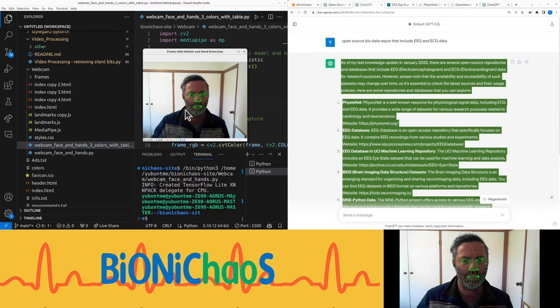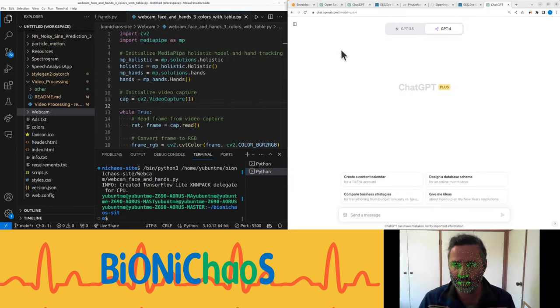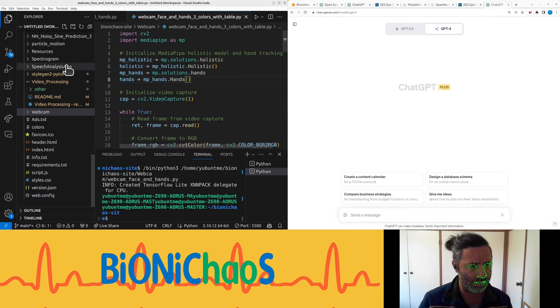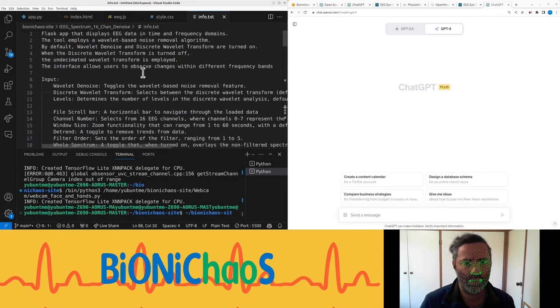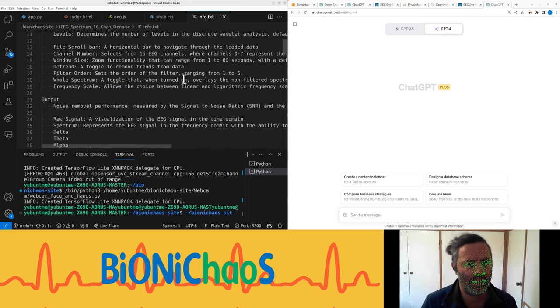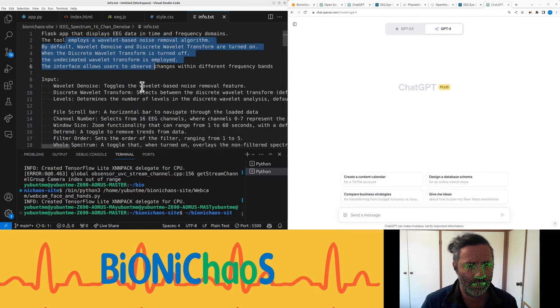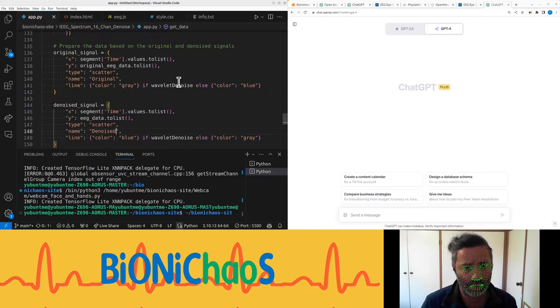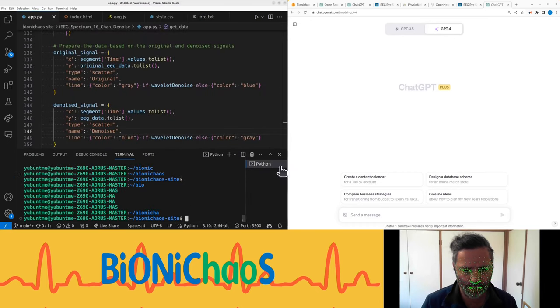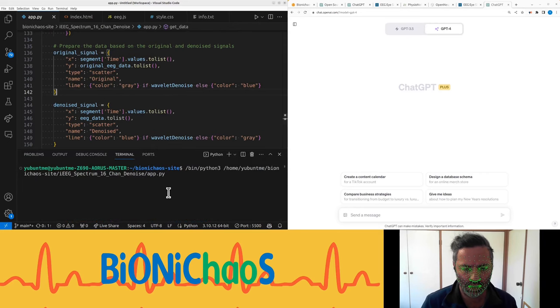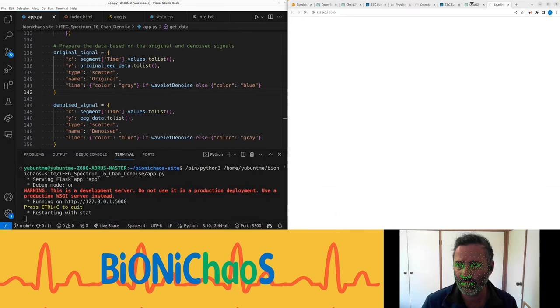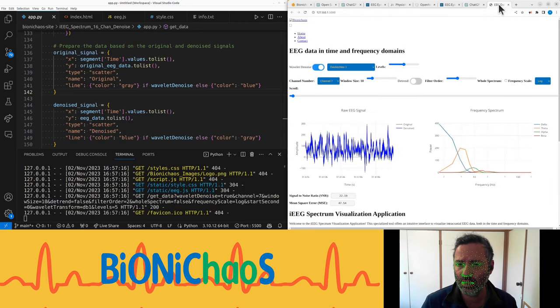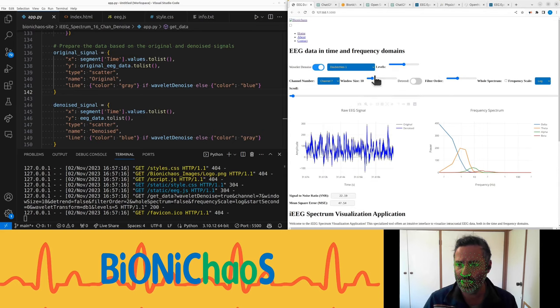It's working, so we have hello. Let's finish this web application that we were doing. So we have those prompts that we used in the last couple days and long story short they yielded a pretty decent last application that looks like this. Hopefully it works.